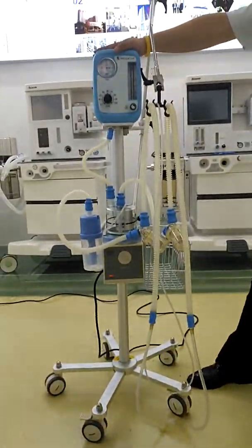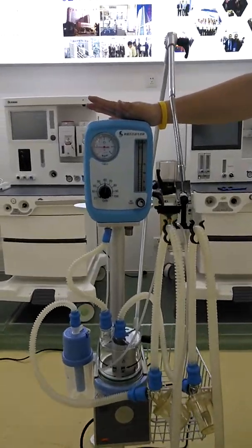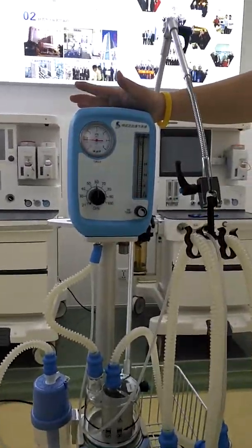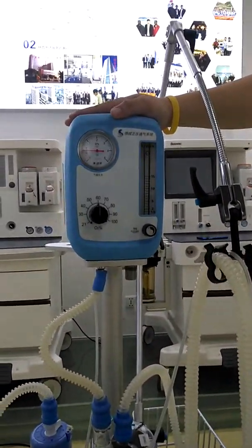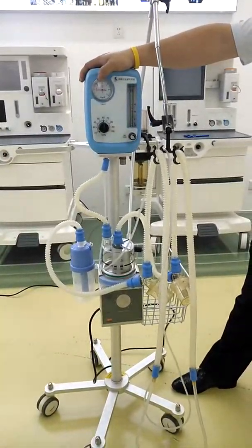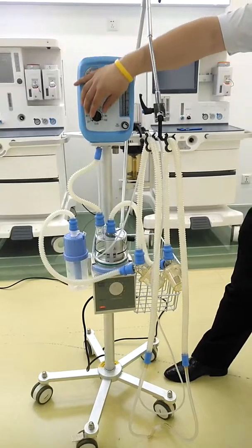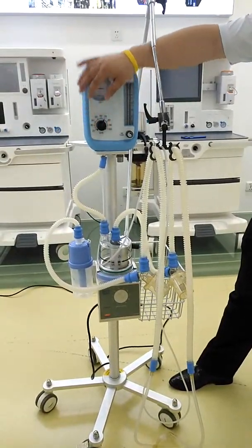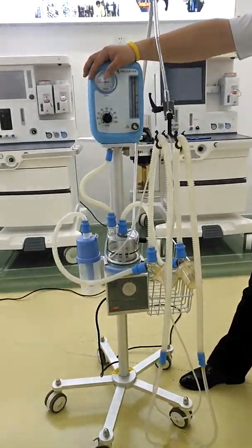First, on the main engine, you can see this model doesn't need a battery or AC power. It's a mechanical ventilator. Here is the pressure meter for monitoring the pressure, and here is for adjusting the oxygen concentration from 21% to 100%.